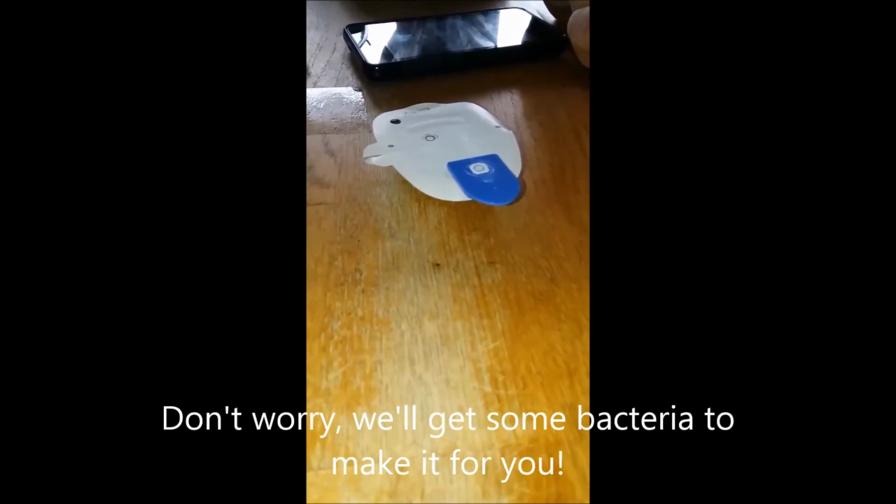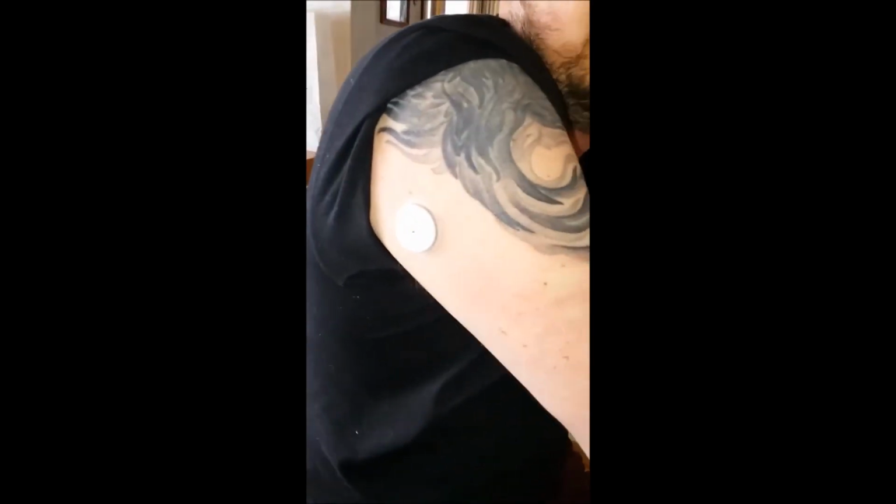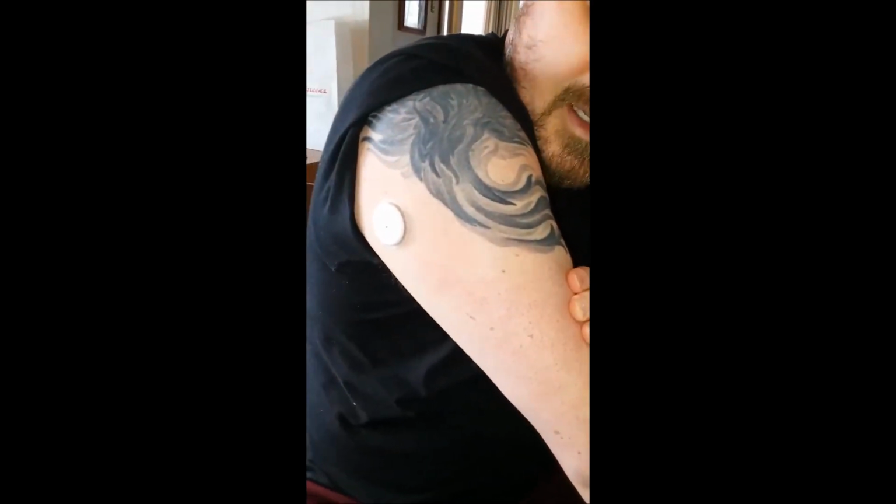So as this primes, we'll do some introductions. I'm Mr. Gates. I am Mrs. Gates' husband, and I'm type 1 diabetic. On this arm, I've got this cool little thing. It makes me all bionic. It does constant glucose monitoring. It measures the sugar that is in my blood.